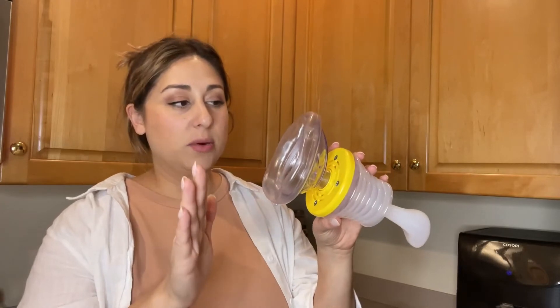It is very easy. Follow the instructions and go on their website as well. I recommend everyone adding this to their emergency kits, especially if you have kids. Who knows — maybe someday you might save a life. But that is just my point of view.